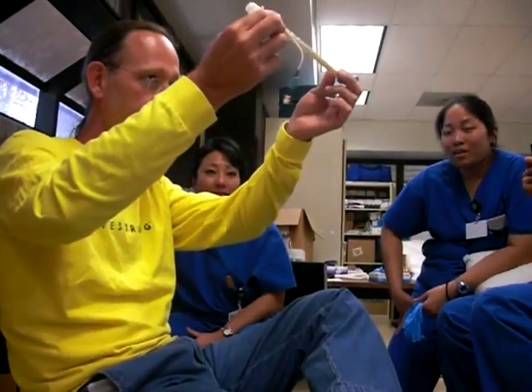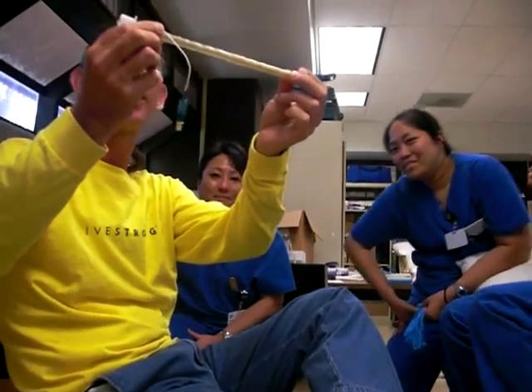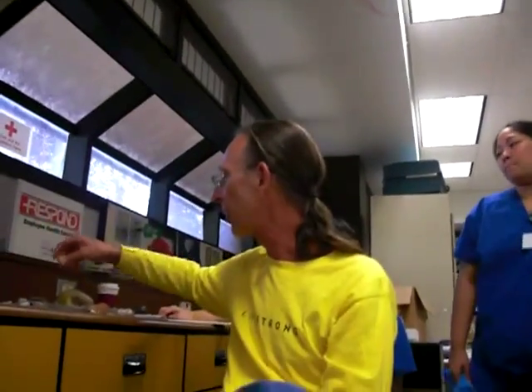Here is a wire-reinforced tube. This is made of a very, very soft material that is more comfortable for the patient and less likely to damage the airway. But it's so soft that it'll collapse - when it gets warm in the body, it gets so soft it actually kinks. So the wire is to keep it open. These are specialty tubes.